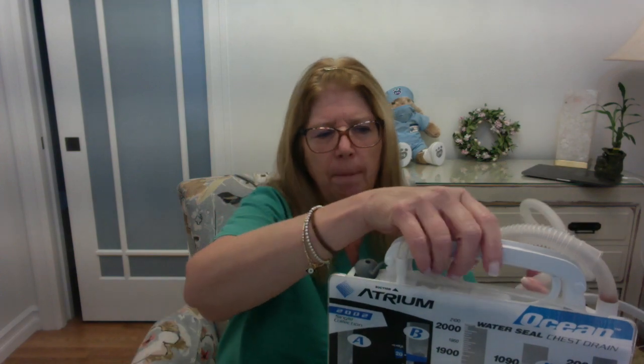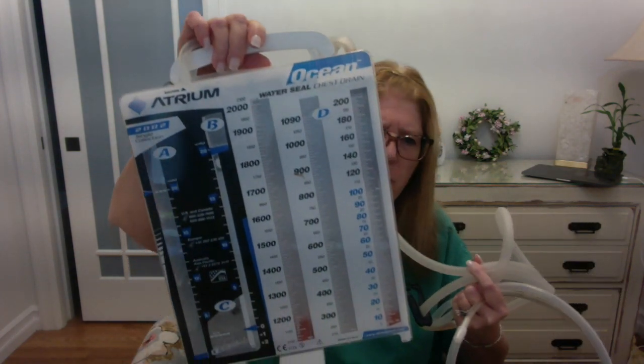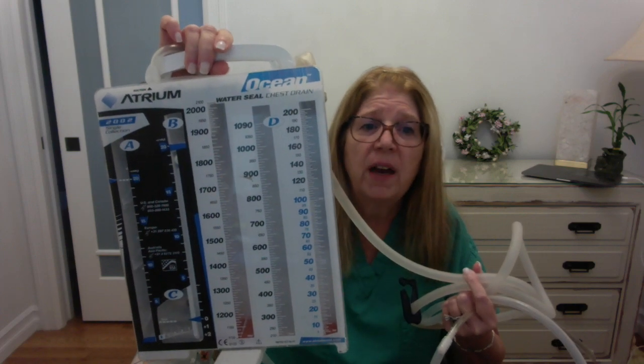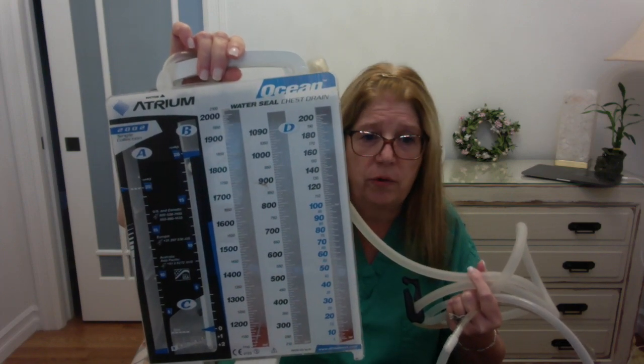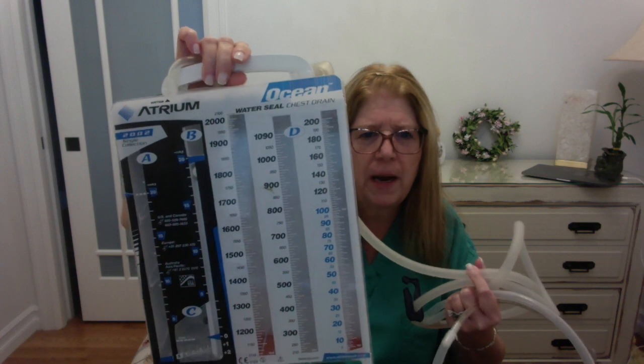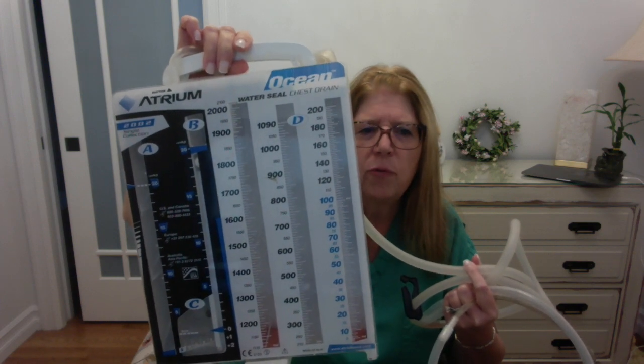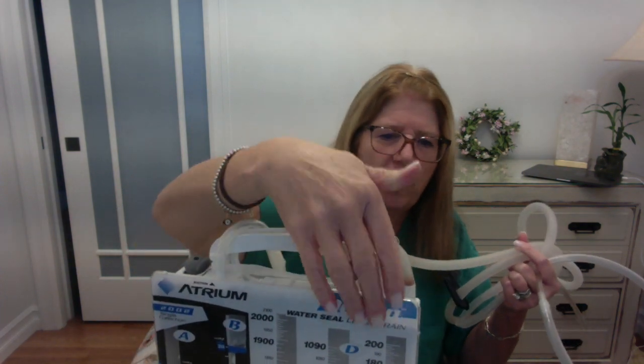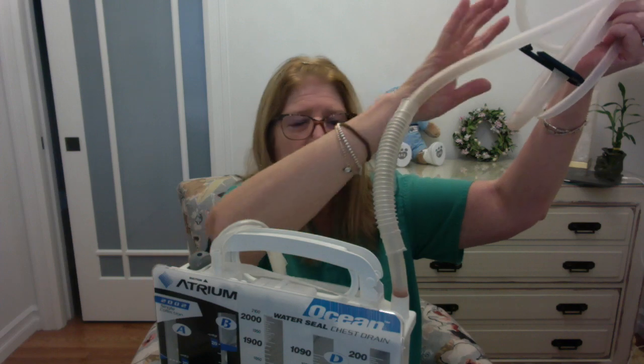So these chest drainage units, also known as a pleurovac, are divided into three sections. It might not be apparent to you right now, but they're divided into three sections. So that first section, which is the section right here, is where this tube from the patient is draining into the drainage section, which is this section right here.